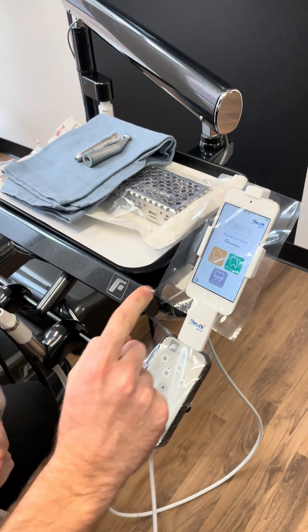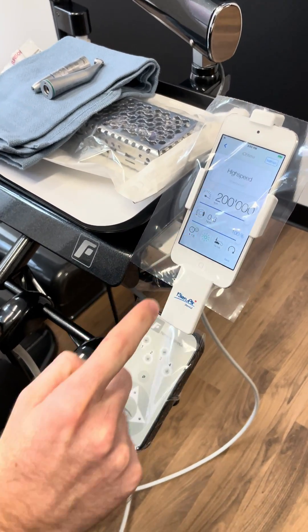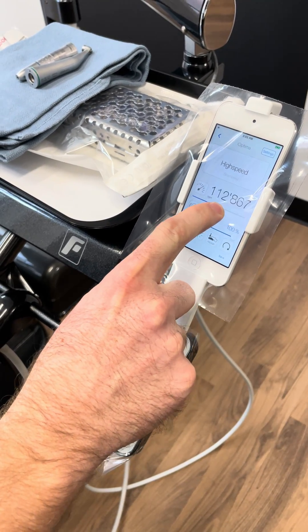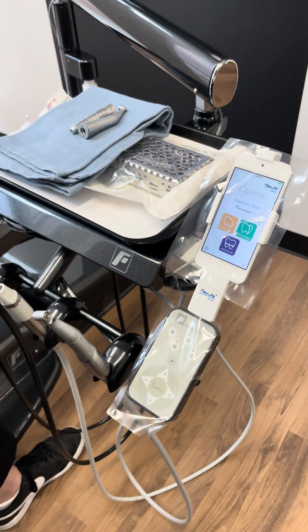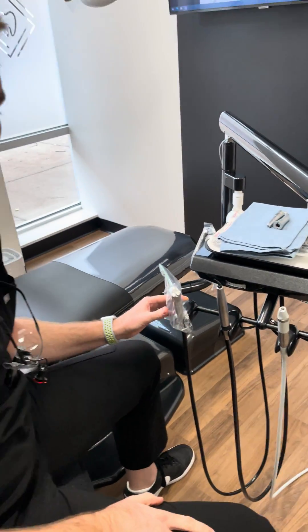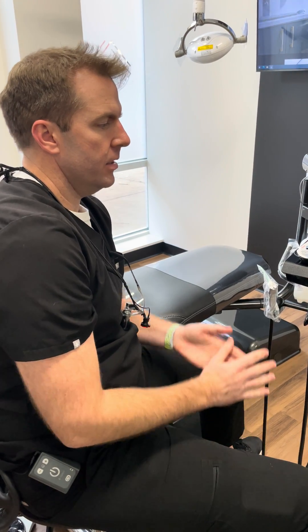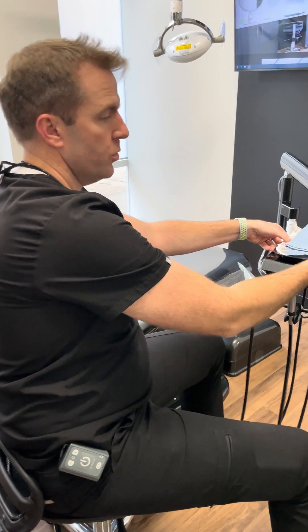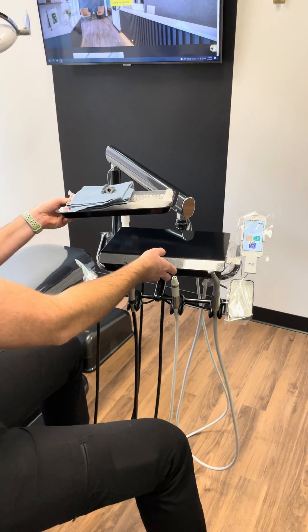I even got a piezo attached to this system as well, but you've got your high speed and your slow speed settings on here and you can change the RPMs. I worked with Kara Skeen and Ryan Clary over at Midway Dental — they really helped install this system and helped me troubleshoot anything that might have been a hiccup in the beginning.